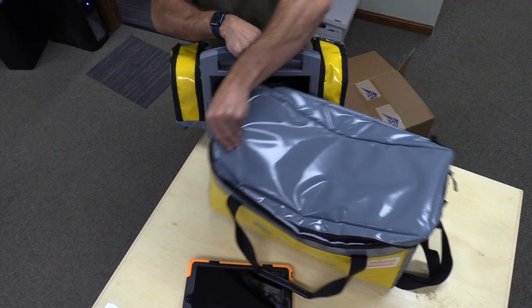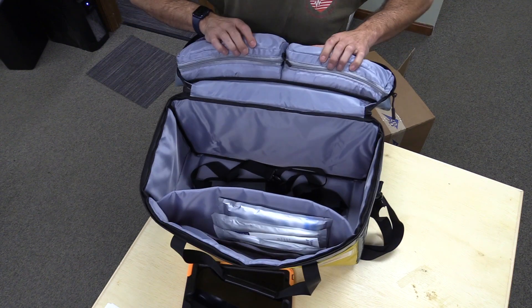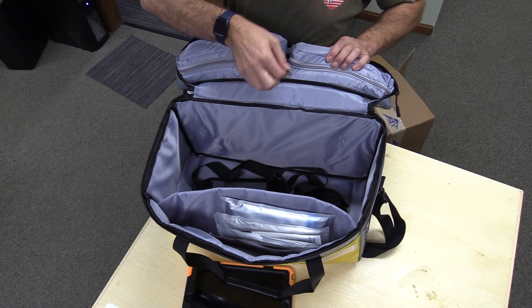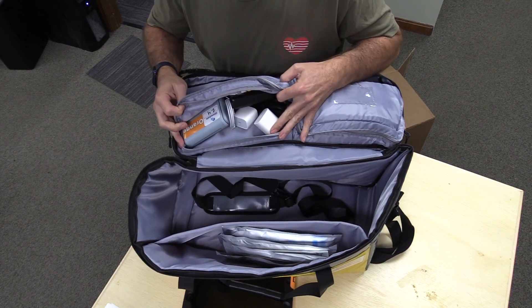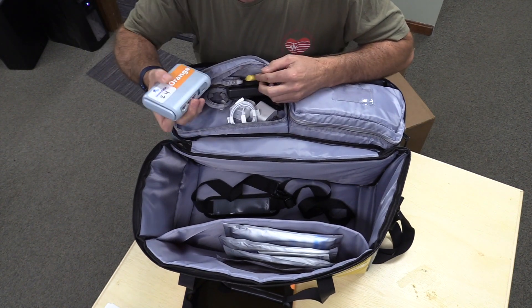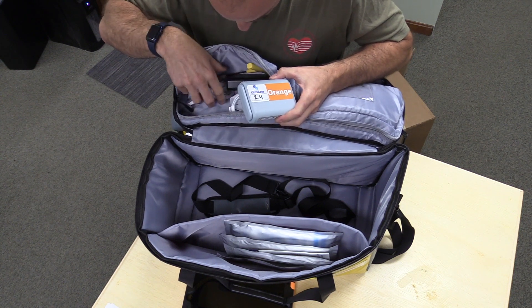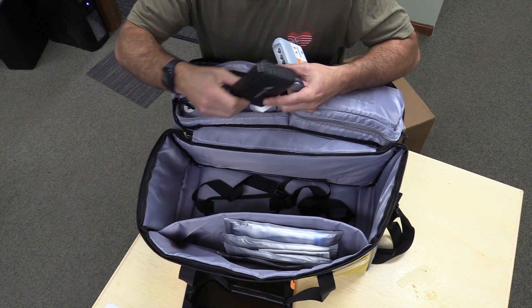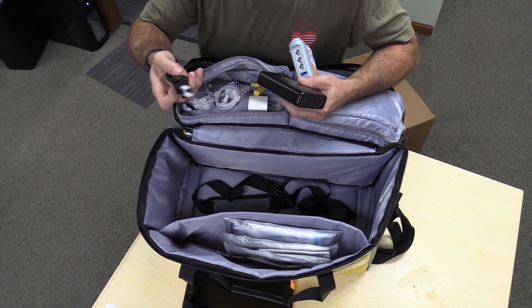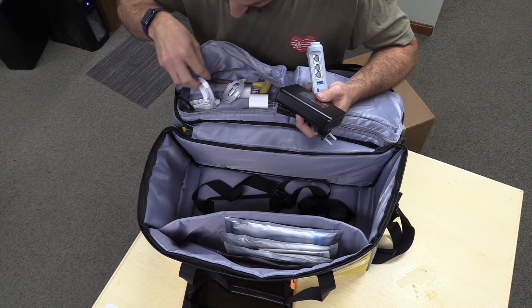There's a small back pocket which you can use for storage. At this point we're ready to power everything up. We're going to go ahead and find the power lead, the USB hub and its power supply, and plug it all in so that we can power up the router and get started.